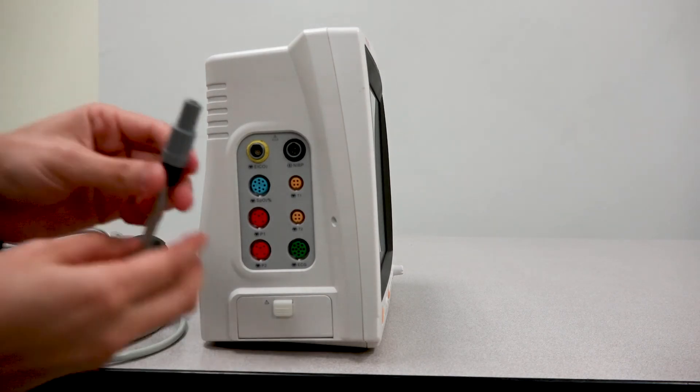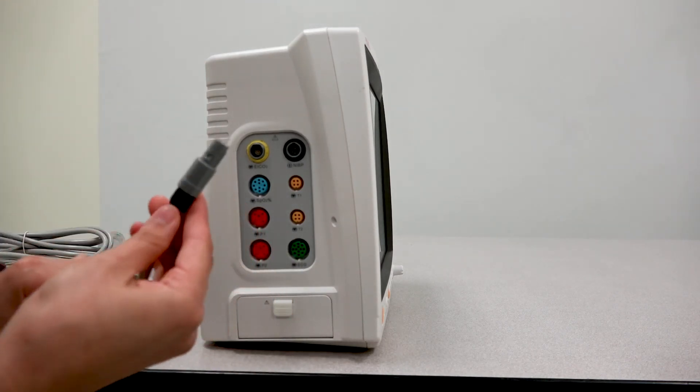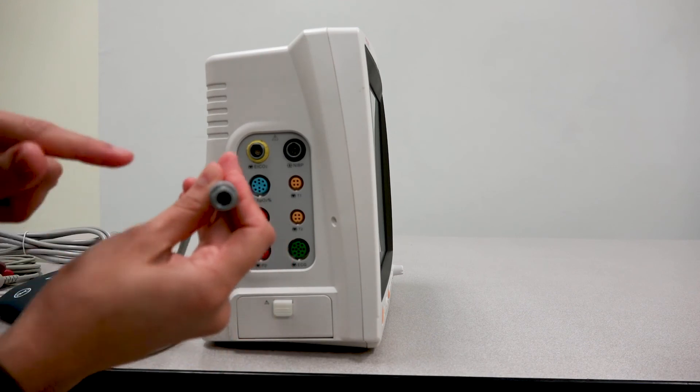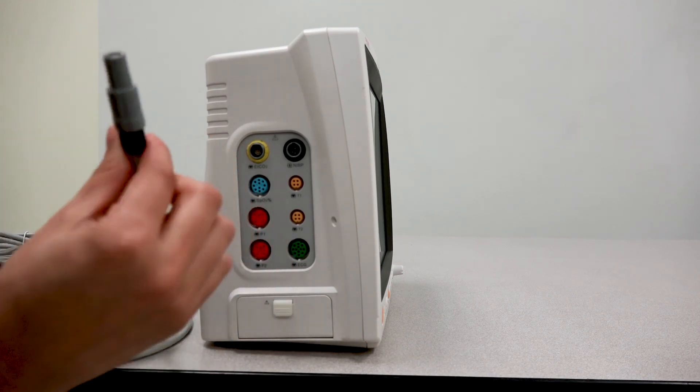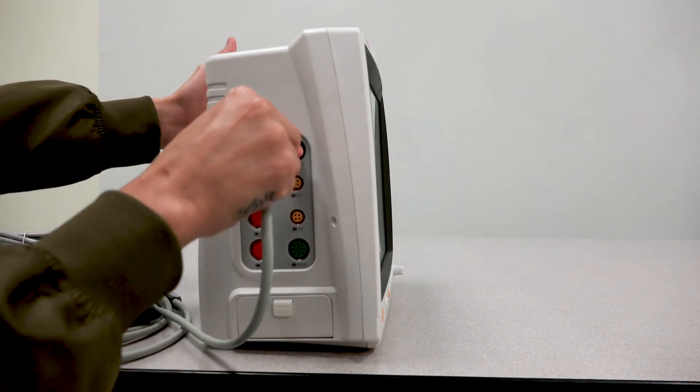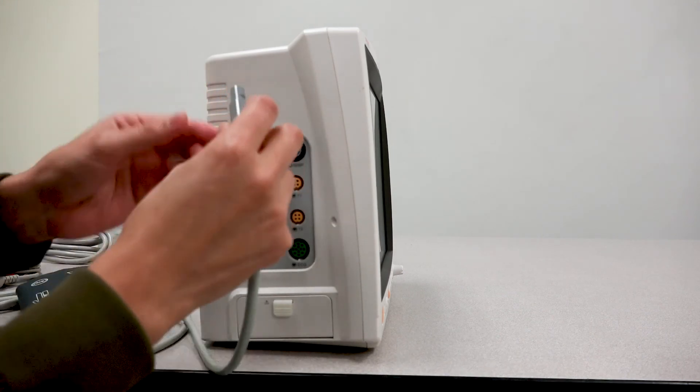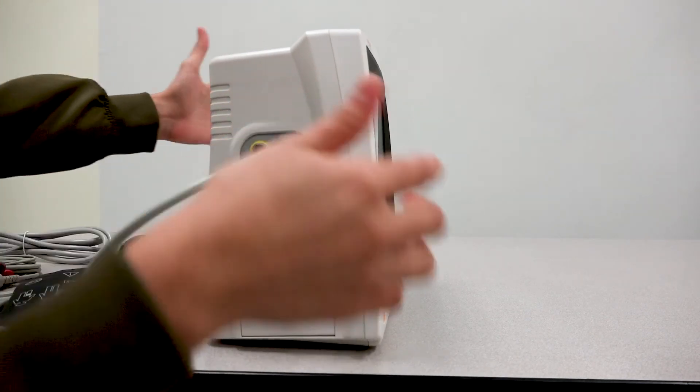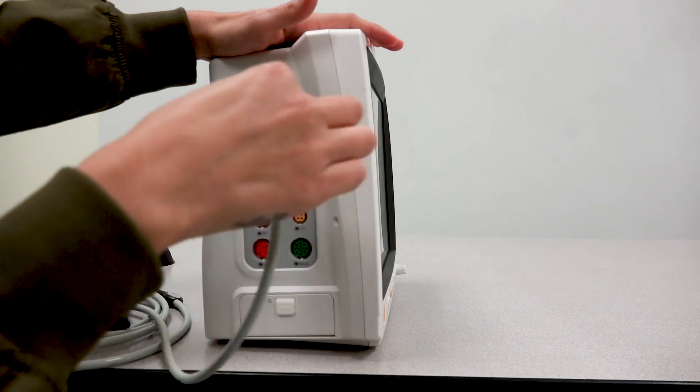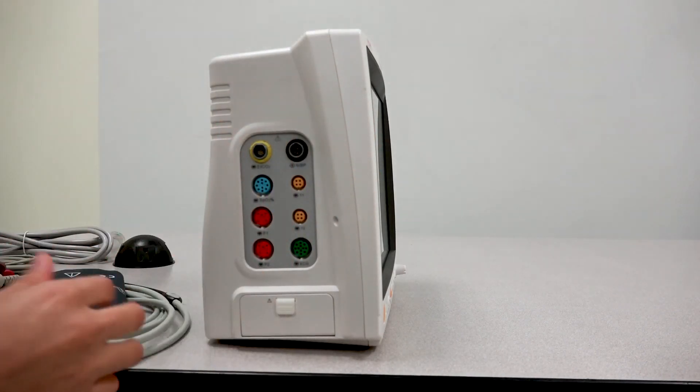Same deal with this side that will connect to the monitor. There is a groove on this connector. So be sure and be mindful that you are inserting it correctly. There you go. And it's easy to just pull out.